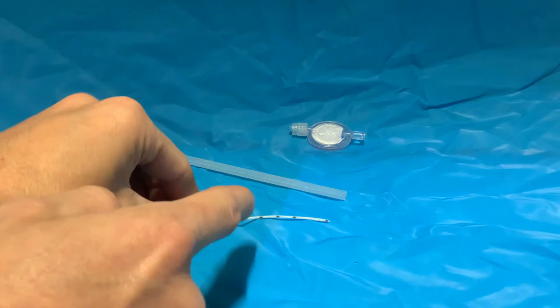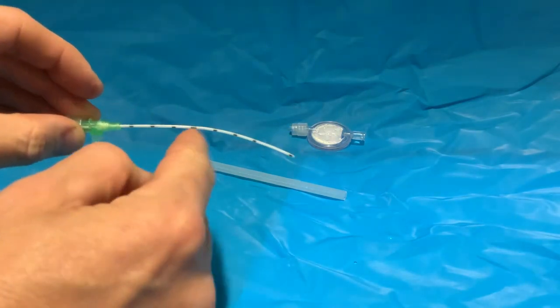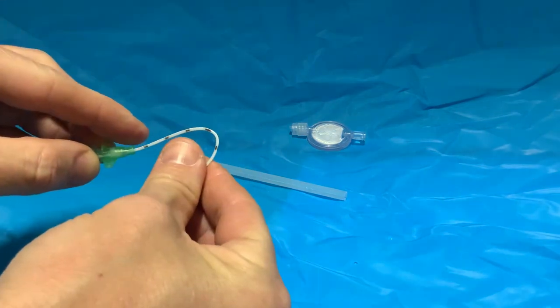When you have created the completed unit with the cannula and the catheter, it's very resistant to kinking when bent.